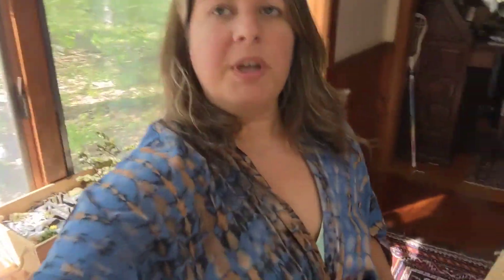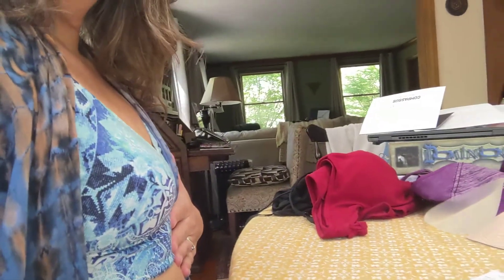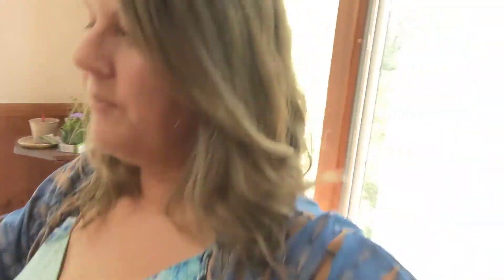I just wanted an inexpensive option and it's what I'm wearing on this side. As you may be able to tell — I'll help you out here — this gives just a little bit of a profile. Not a big one because it's only about one cup size worth. But in comparison to the other side, you can see where in actuality I just have a bumpy section at the bottom and then go pretty concave. So it is enough to smooth me out and give a normal profile in my bikini top, or even a normal drape if I put something over the top.